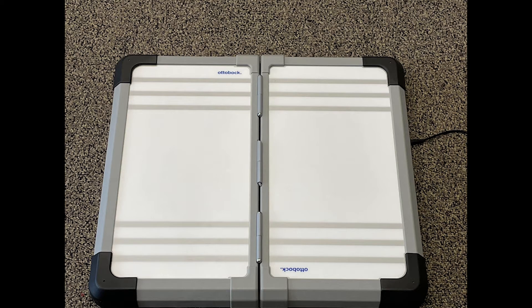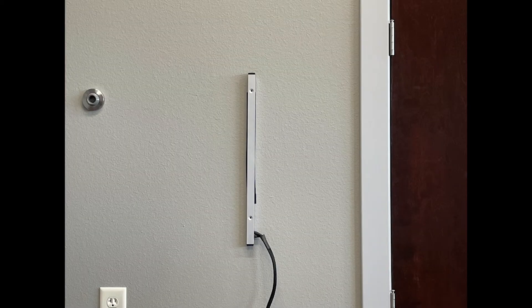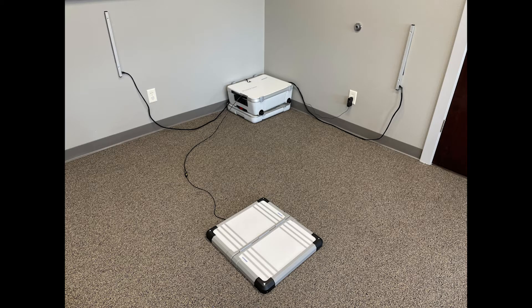There are four parts to the LaserPosture. The first is a platform or force plate that we will ask the patient to stand upon. The second is a set of cameras — one placed in front of the patient and the other to the side. The third is a central processing computer that collects information from the platform and cameras, and then uses that information to create and transmit an image to a tablet. The tablet is where the practitioner can view the LaserPosture images and interpret the adjustments that are being recommended.